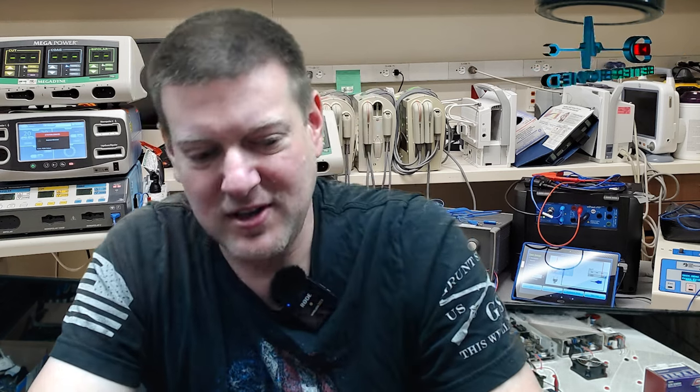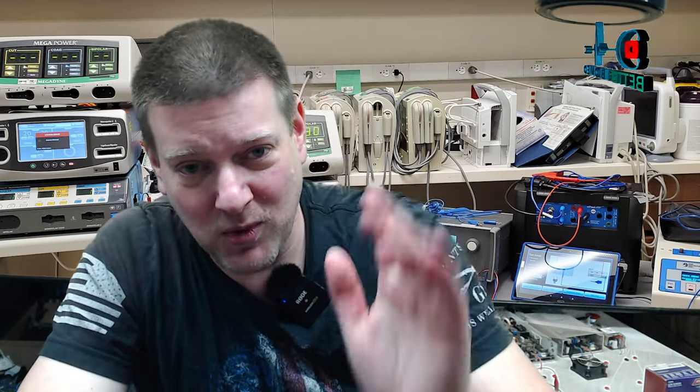Here's the thing: they gave me the runaround, they won't sell me the board, and it's just not a repair-friendly company. So guys, I would consider these words — I have not had treadmills fail as often as these, and it's not because of heavy use. They're just one day kind of failing. Take my words of wisdom: I've never seen medical devices fail quite like this, quite so often, for little to no reason.